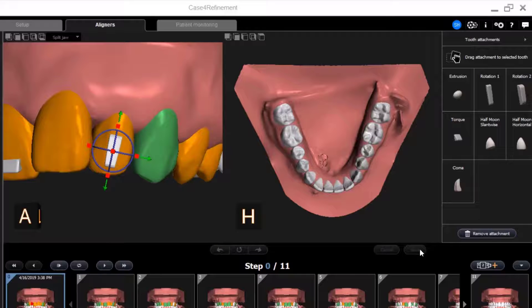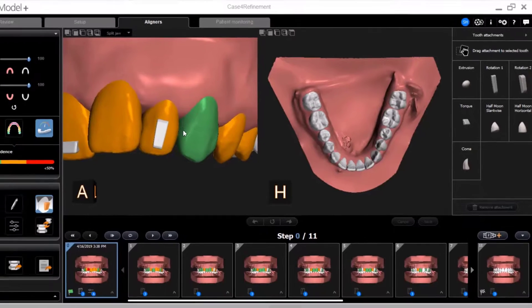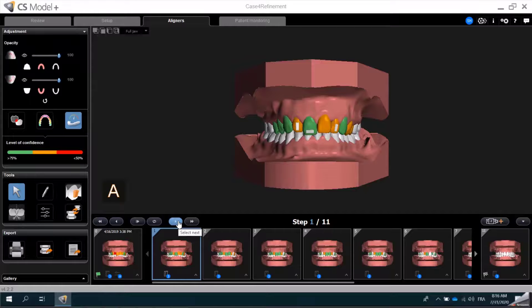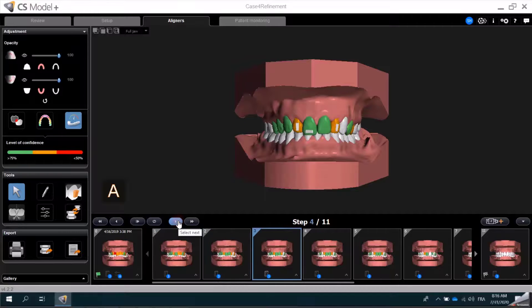The Resize and Rotation tool may be removed by right-clicking on the attachment. When I'm finished, I will click on Explore the Intermediate Steps to revert back to the previous window. You can see that the attachments I placed now appear on the teeth. As I click through the steps, you'll notice that the attachments are always following the tooth movement.